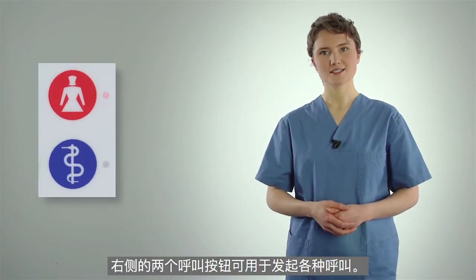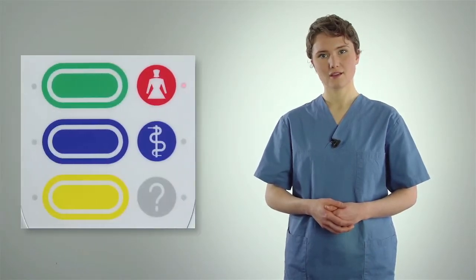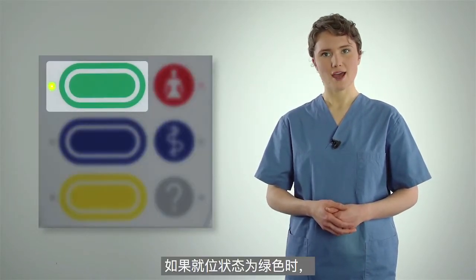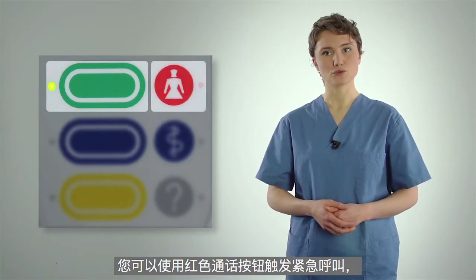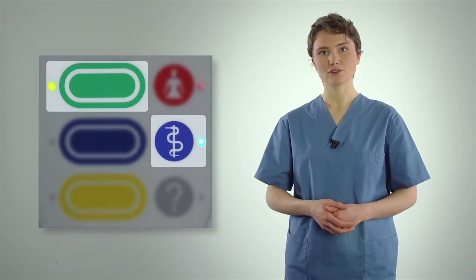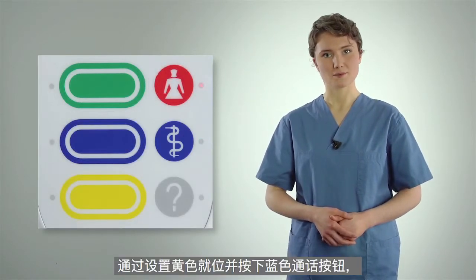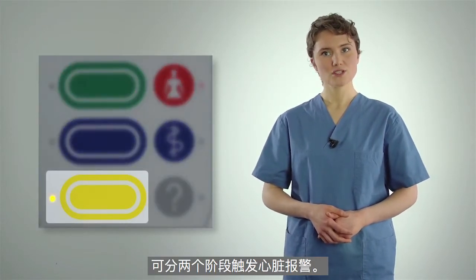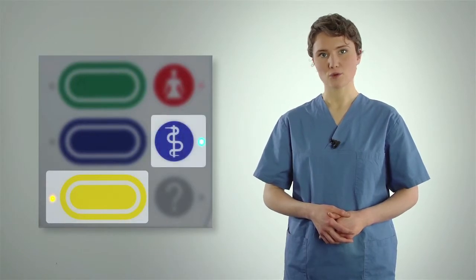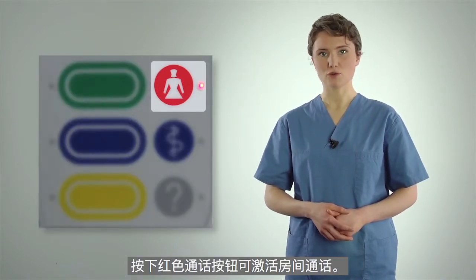The two call buttons on the right side can be used to initiate various calls. When a green presence is set, you can trigger an emergency call with the red button and a doctor call with the blue button. A heart alarm is triggered in two stages by setting a yellow presence and pressing the blue call button. If no presence is set, pressing the red call button activates a room call.